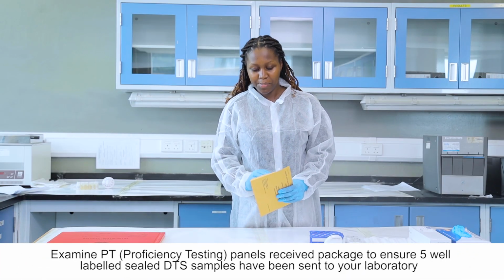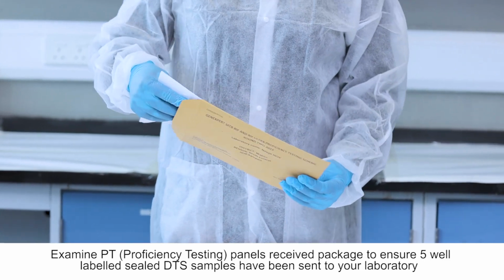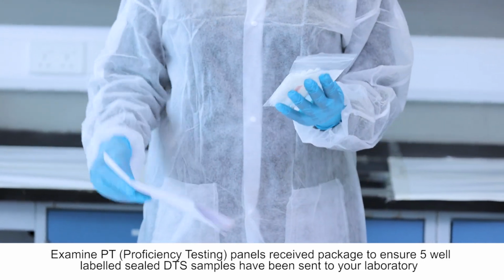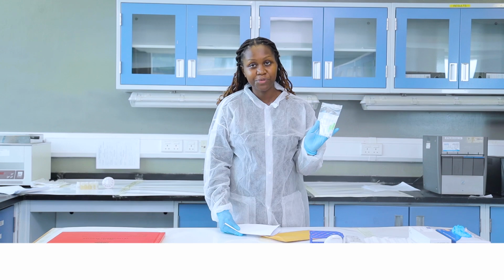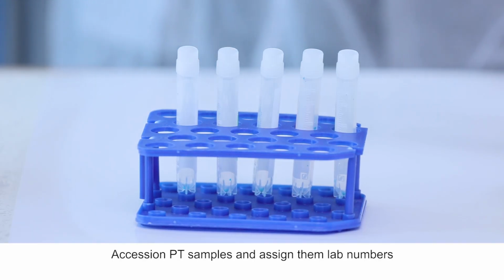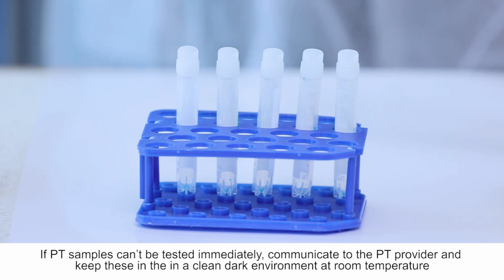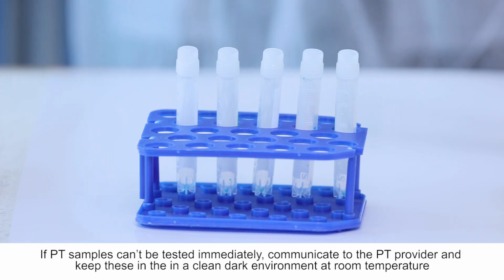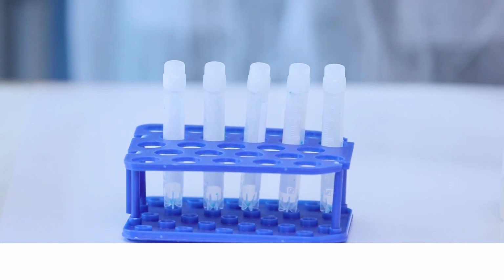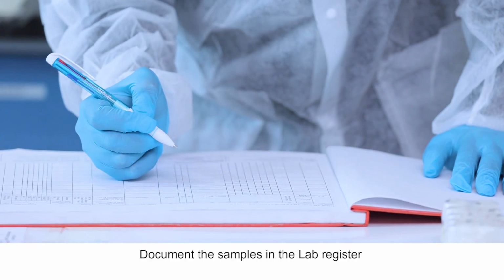Examine the PT received package to ensure 5 well-labeled sealed DTS samples have been sent to your laboratory. Accession PT samples, and assign them lab numbers. If PT samples can't be tested immediately, communicate to the PT provider, and keep these in a clean dark environment at room temperature. Document the samples in the lab register.